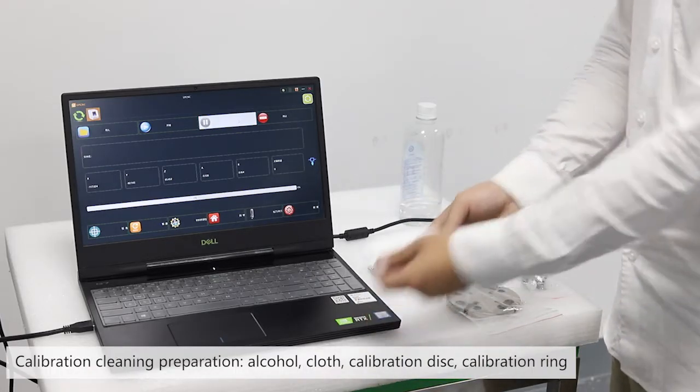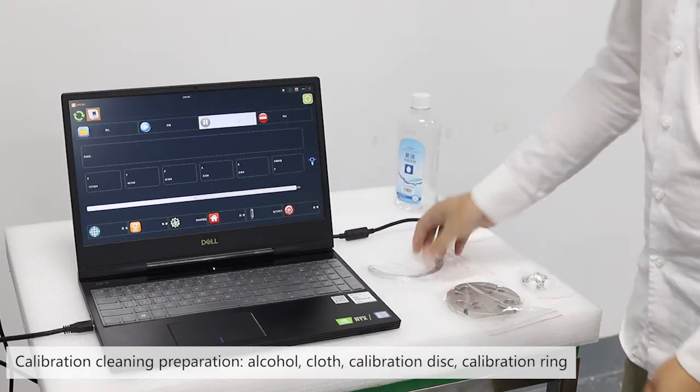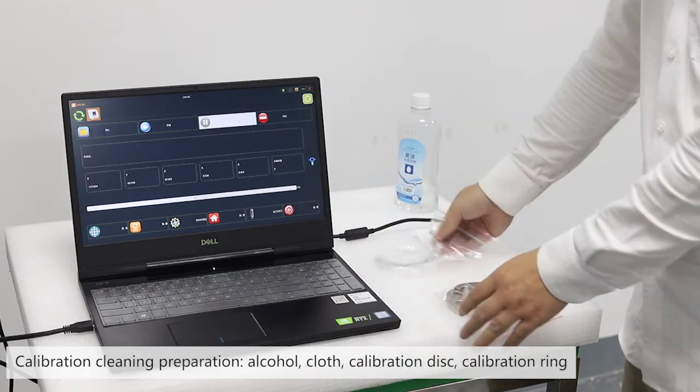Calibration cleaning preparation: alcohol, cloth, calibration disc, and calibration ring.